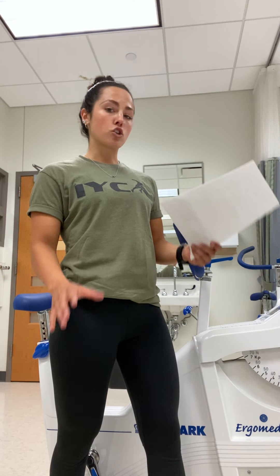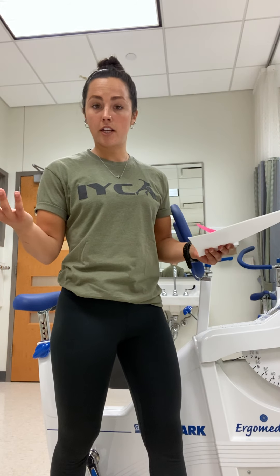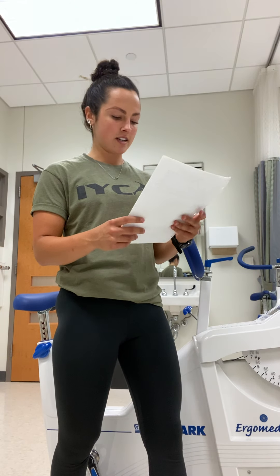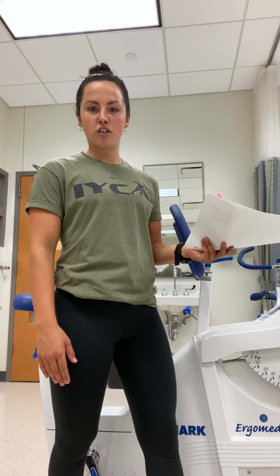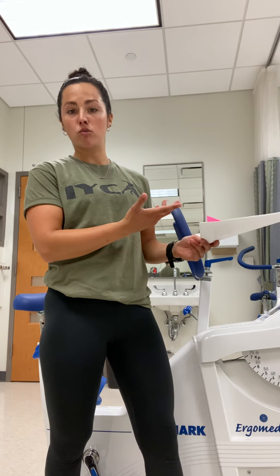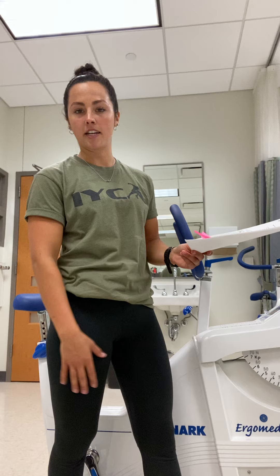What we've found is that keeping someone consistent at a cadence and then just adjusting kg throughout the stages is probably the easiest approach. You can choose whatever cadence you want, plug it into the equation, and figure out kg from there. Note that men and women have different watt targets, so make sure you're looking out for that. Typically a comfortable pace is around 60 to 70 RPMs. Before you have them hop on the bike, do those calculations first so you know exactly what to adjust at each stage.